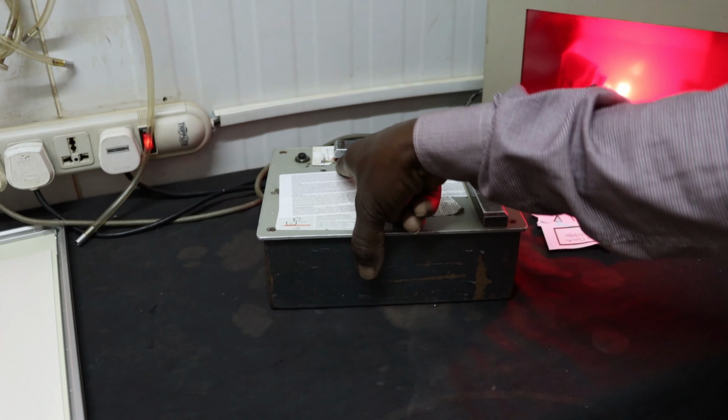When it is totally dark in here, the people who are working here switch on the safe light. They rely on the lighting or illumination that is coming from the safe light. That's the illumination they have. And then when they switch off the light, it becomes dark. They wait a bit to get adapted to the environment. Let's now get into the practical business and switch off the lights.